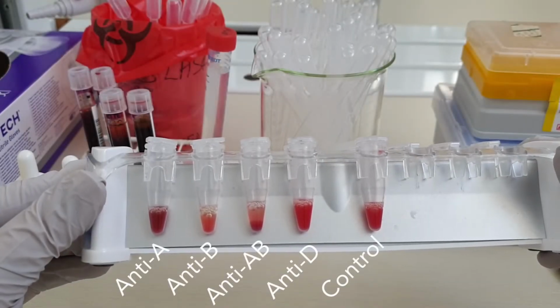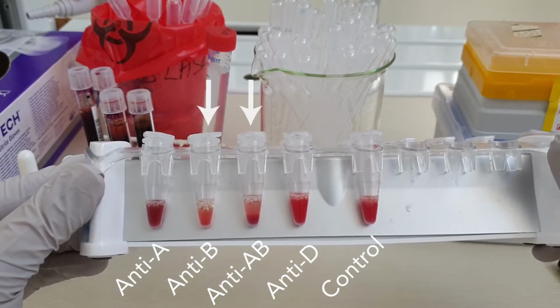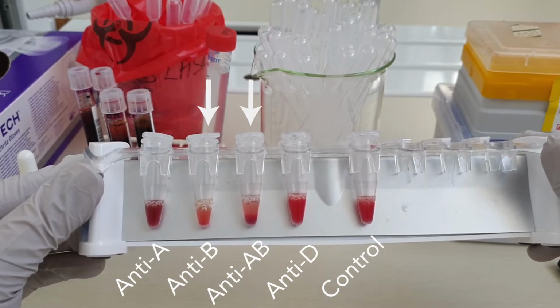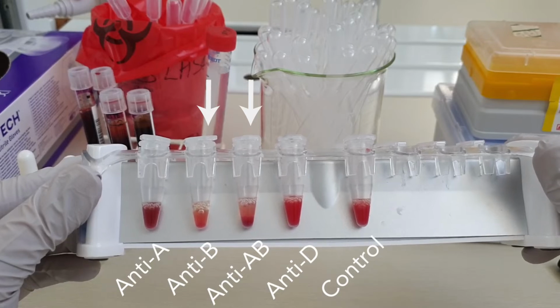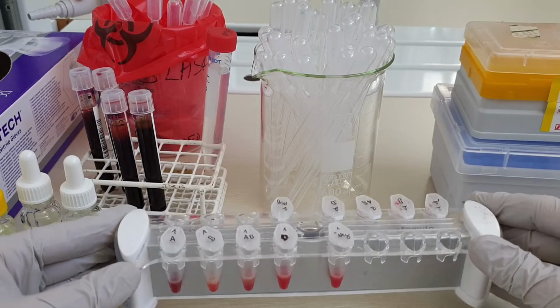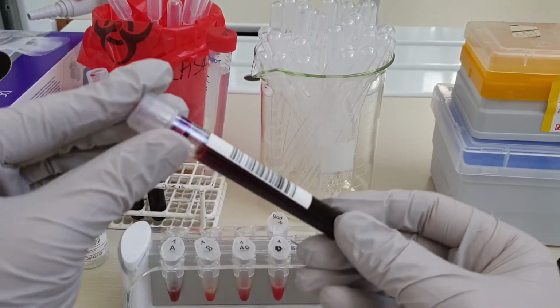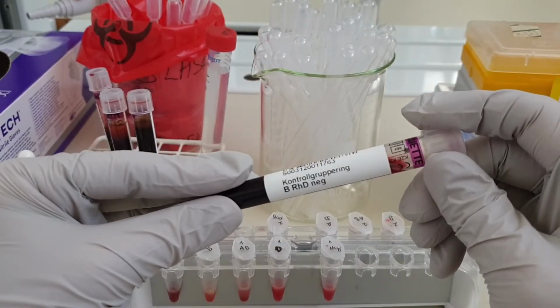Finally, we can have a look at our results. For each antibody, we check if we can observe any agglutination. We can see that there are clumps for both anti-B and anti-AB, and that there is neither agglutination in the negative control, which is good, nor in the tubes with anti-A or anti-D. From this we can infer that the donor was type B negative. And if we go and check the label on the blood sample, we can confirm B rhesus D negative.